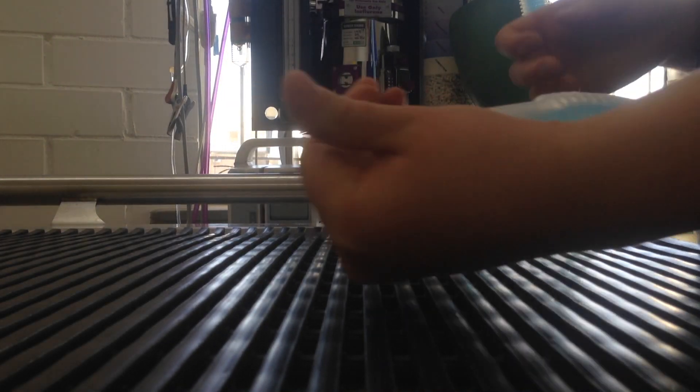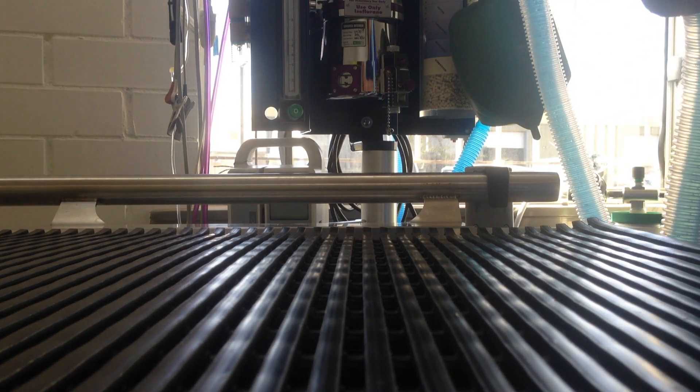I've included the end of the circuit that would normally be for the patient.